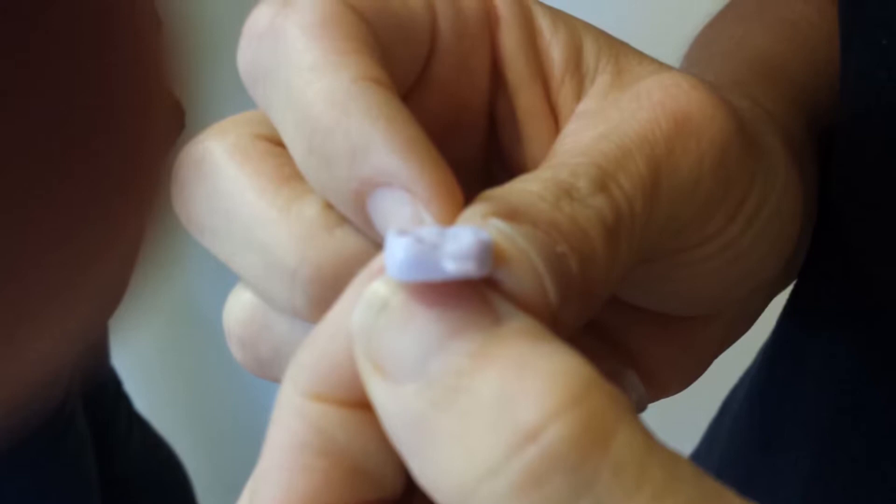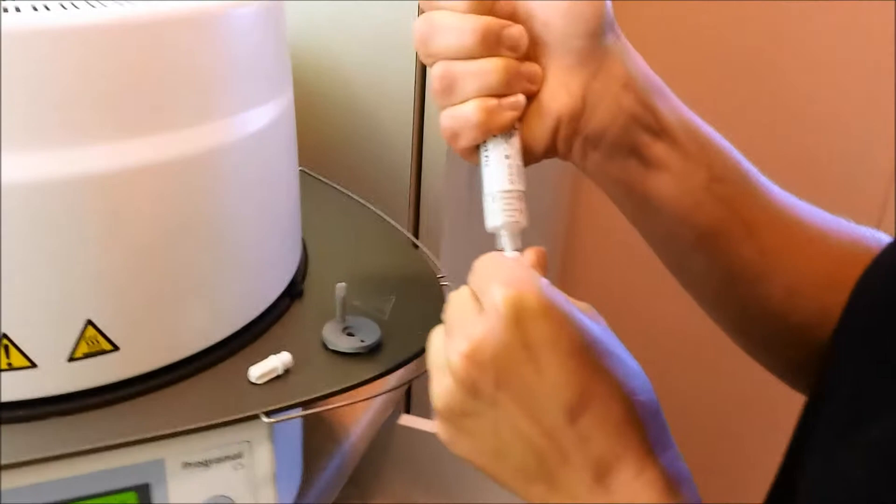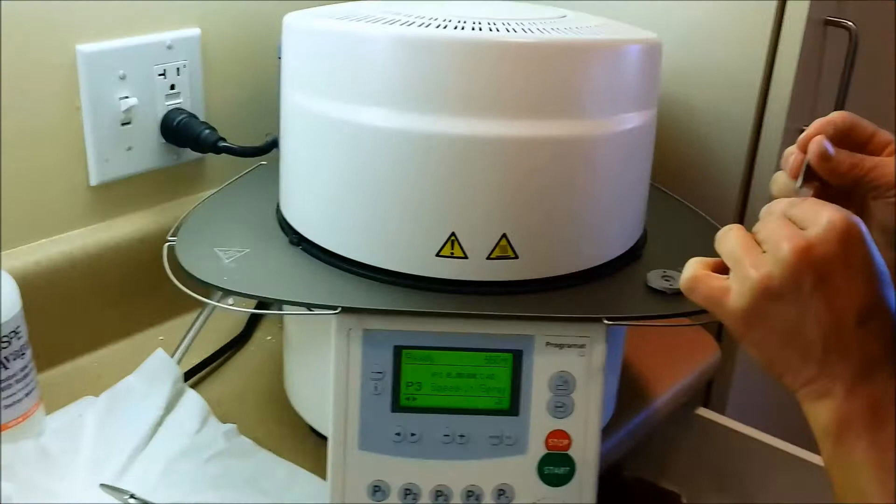This part now? So I'm just filling this up with a little bit of putty and that makes it stick on here so that I've got something to work with so I can stain and glaze it.